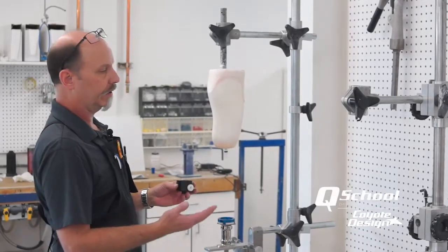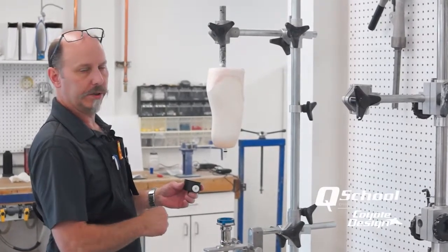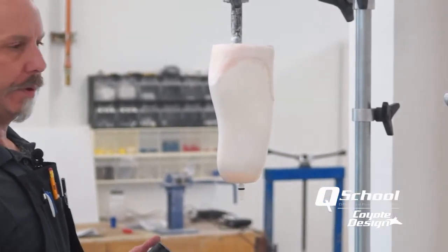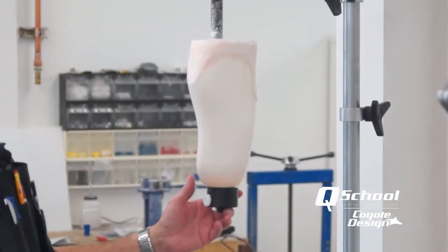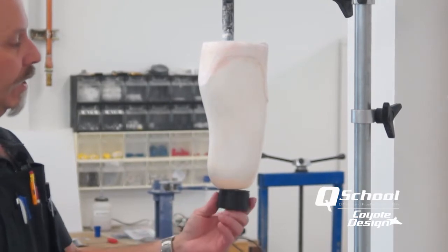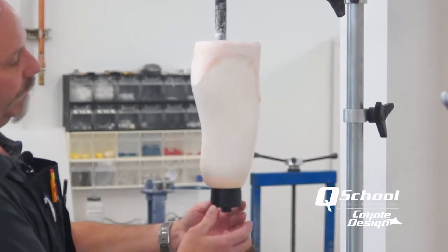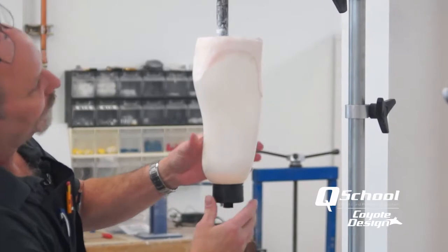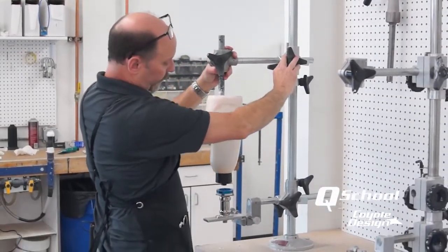Orientation — the reason I bring that up is knowing if it is left or right, making sure you are getting your release button placed in the direction you want it to go. A-typical is medial, but we have also done people that ride horses, motorcycles, and set that button lateral. I have actually seen it where for a geriatric patient we put it straight anterior. So you want to make sure you are getting this orientation where you want it. We have a left leg here, so I am going to place my lever release button on the medial side.